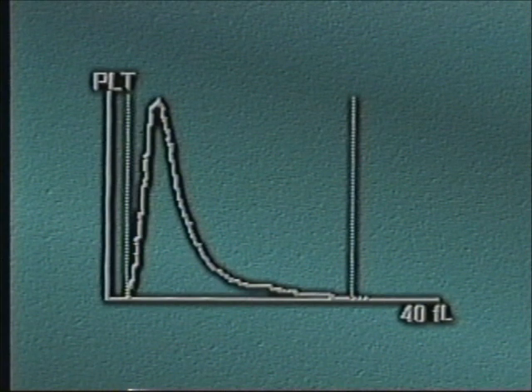This scenario is often seen when the nucleated cells have degenerated, either because the fluid was collected over time in a bedside drainage bag or the specimen took the scenic route to your laboratory. The degenerated cells are now pieces of cells and have moved towards the debris area of the scattergram. These fragments are small enough to appear in the platelet channel.